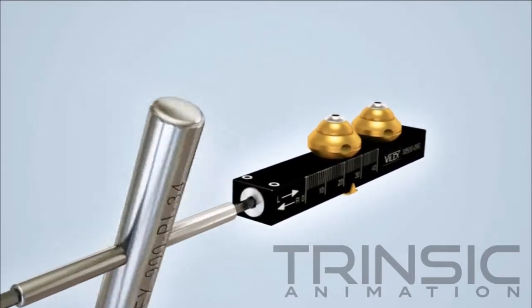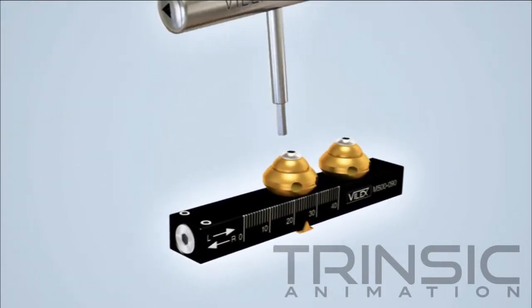Slightly loosen the locking screws for easier insertion of the half-pins through the clamp openings.